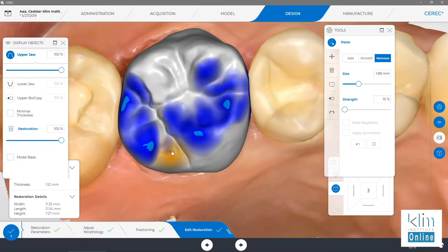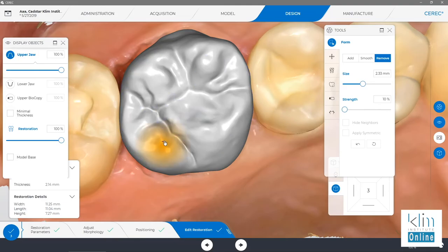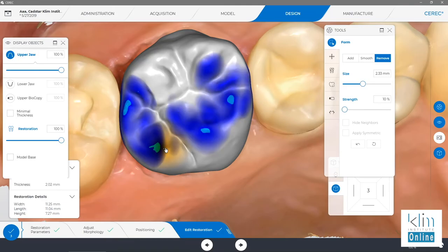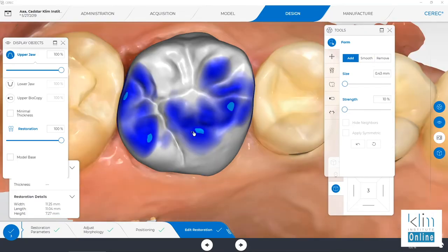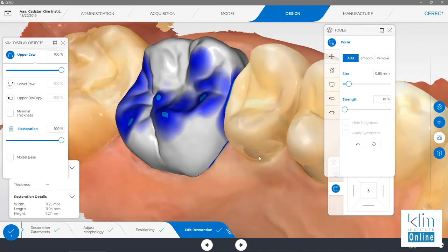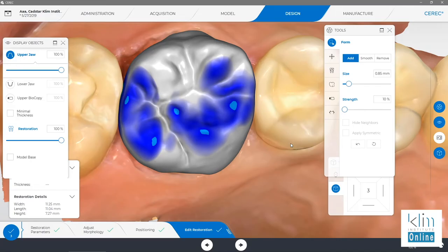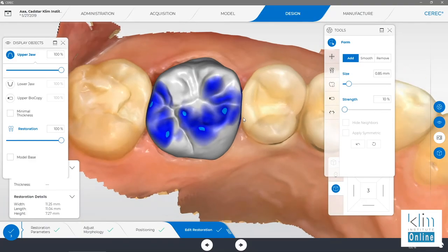The smooth tool, which I used to use for this — and a lot of students coming through my classes still use the smooth tool — is going to round that cusp tip and take away the beautiful morphology. So to preserve that beautiful morphology, use the removal tool at a really small paintbrush size. I feel one more contact on a landing pad here in the marginal ridge will provide a better tripod. Now we have multiple tripods on the lingual cusp and on a landing pad — this is a very stable occlusion. This will act as a GPS system as that tooth settles. A broad contact will be micro-interference and will create more fremitus on the tooth.